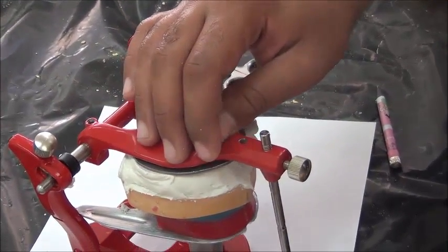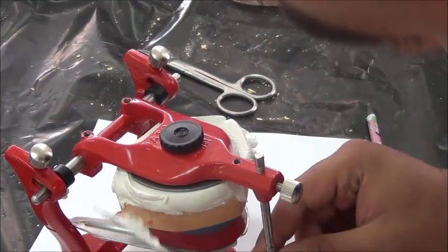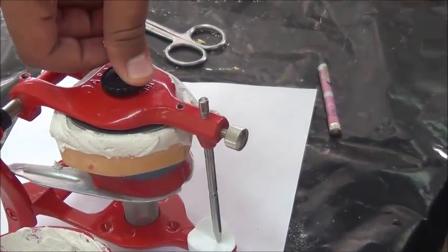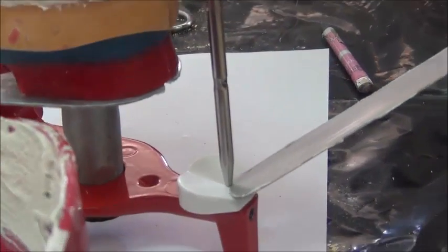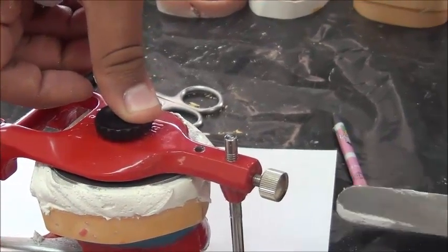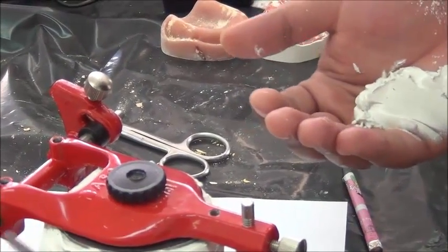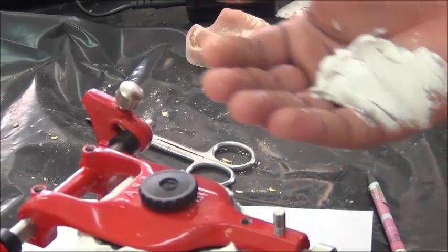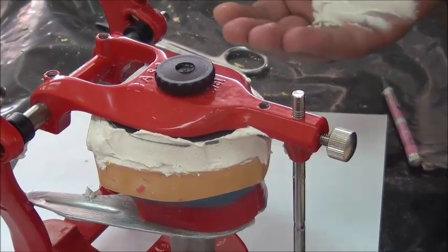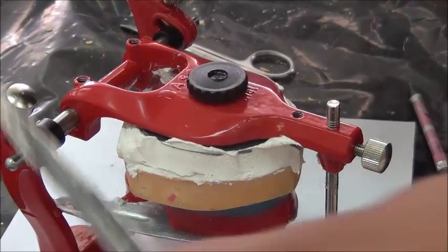And we squeeze into place, making sure that it's still centered. Once we squeeze into location, we want to make sure that we have totally closed, so the incisal pin should meet the incisal table. So that's now correct. The table is meeting the pin. And now the cast is centered in the middle and centered around the upper member. And we begin using this consistency, which is a bit thick, as we told you, to carve away the plaster. We carve away the plaster, making sure it's connected from the cast to the ring only. Any excess is removed all around.